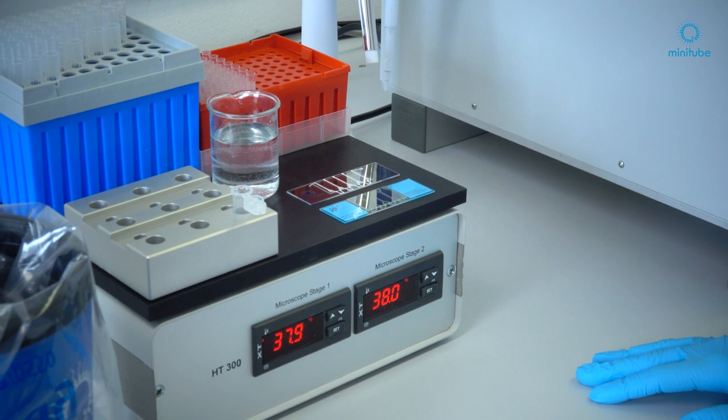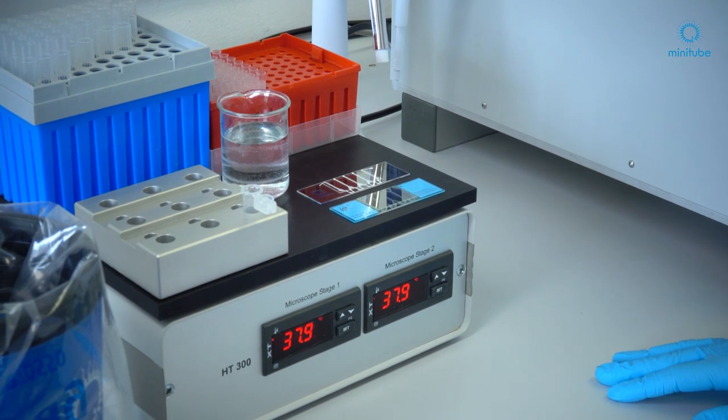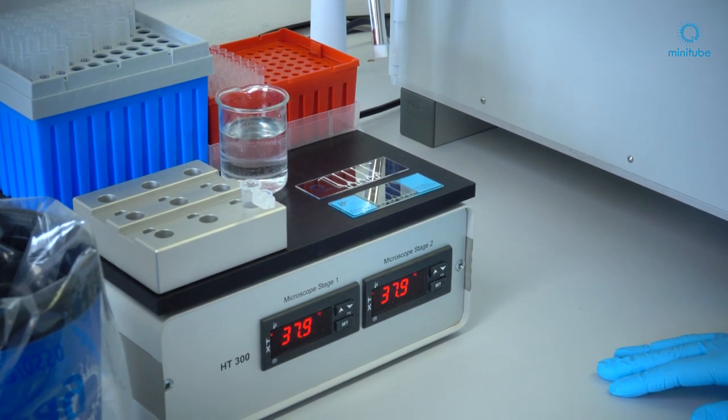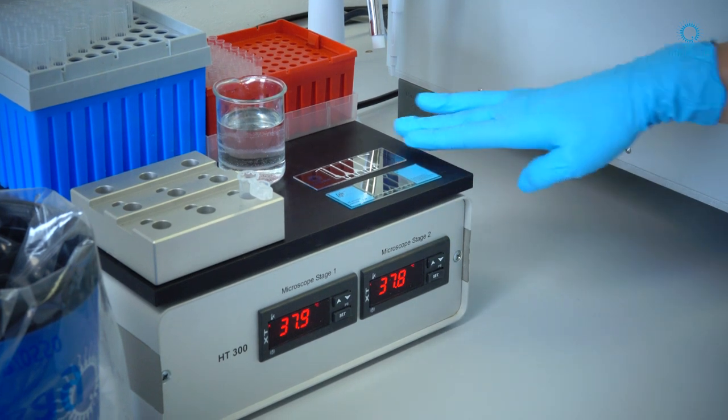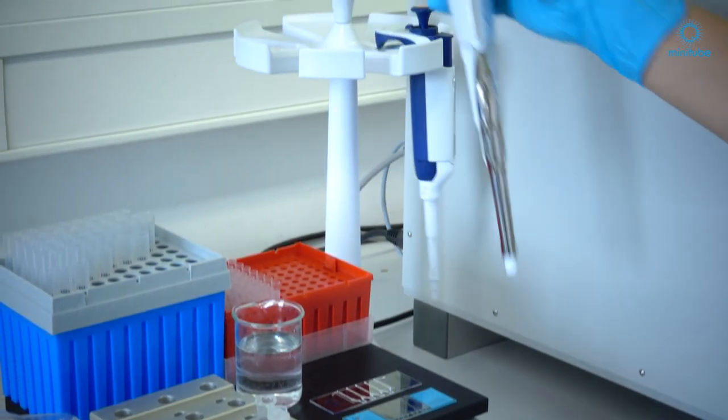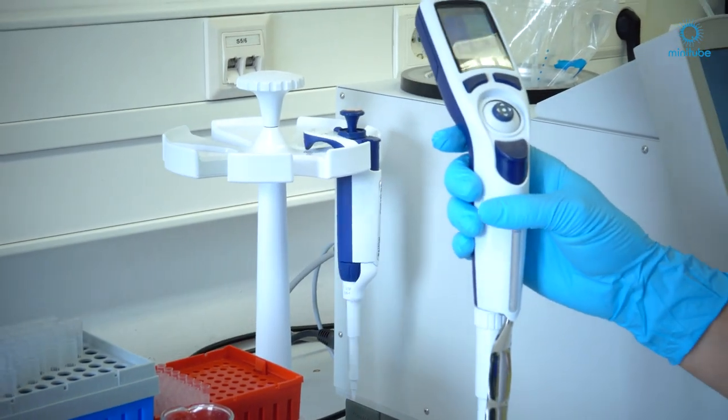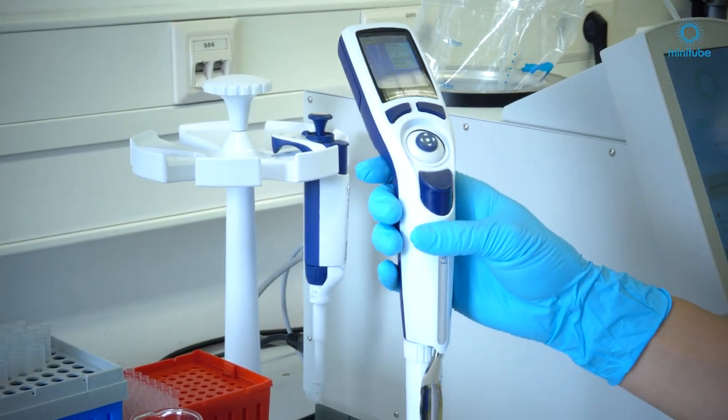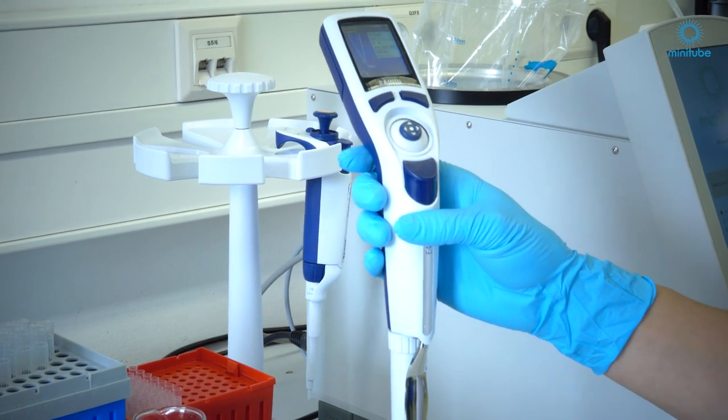I will show you now the sample preparation for an ejaculate analysis when you work with normal counting chambers. Therefore you use the electronic pipette and I will show you now the procedure on an example for porcine.